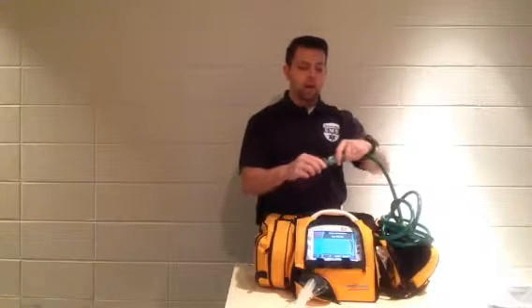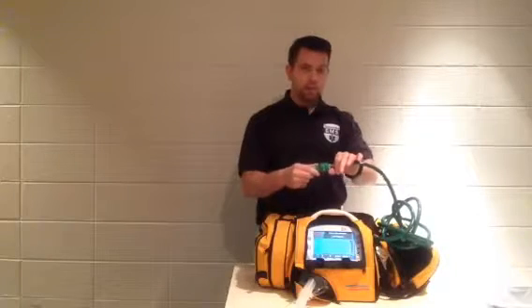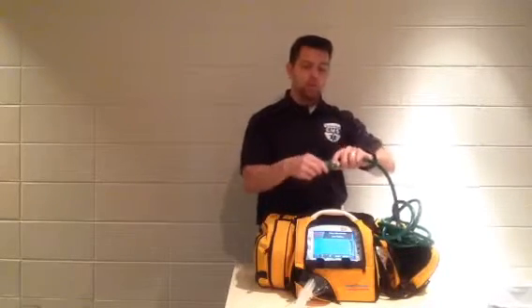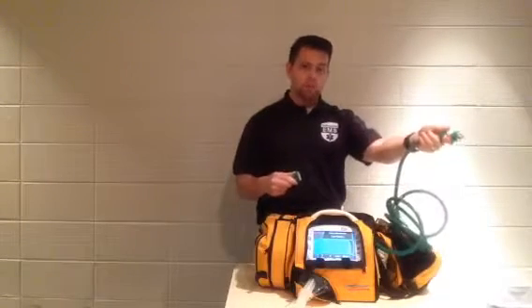That way you can have the patient running on the appropriate oxygen level while they're on the cot and moving from the room to the ambulance or the ambulance to the room. Then once you get inside the ambulance, you're simply going to do a quick disconnect and pop them in so that they're on the main.